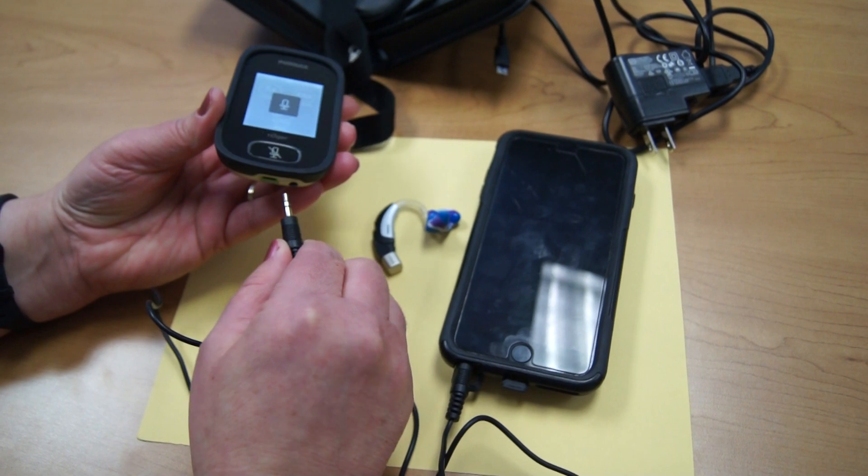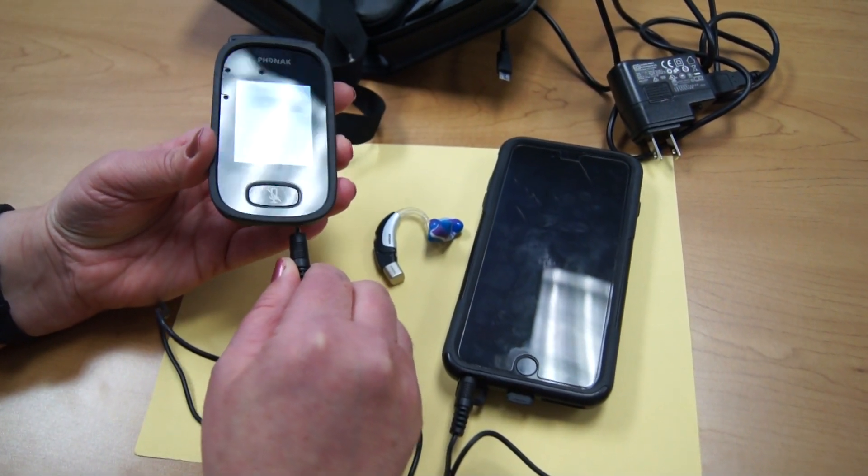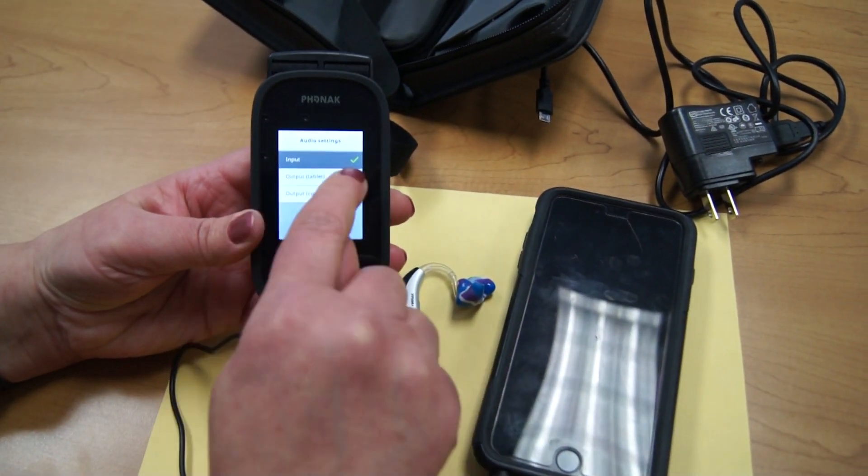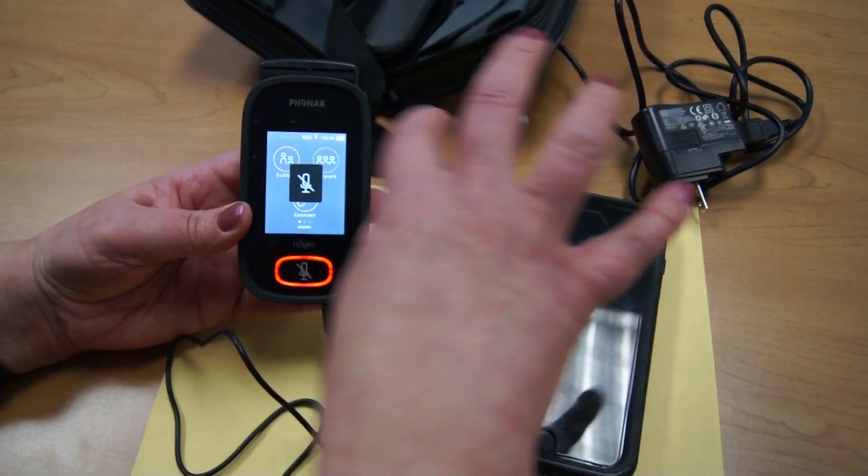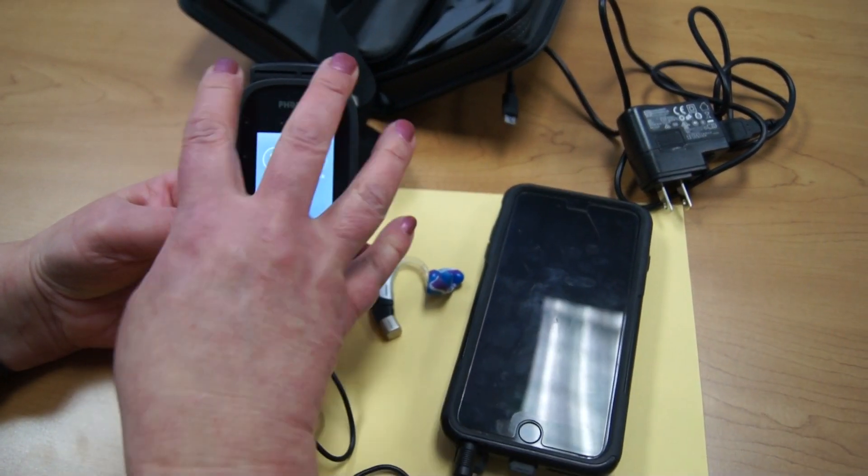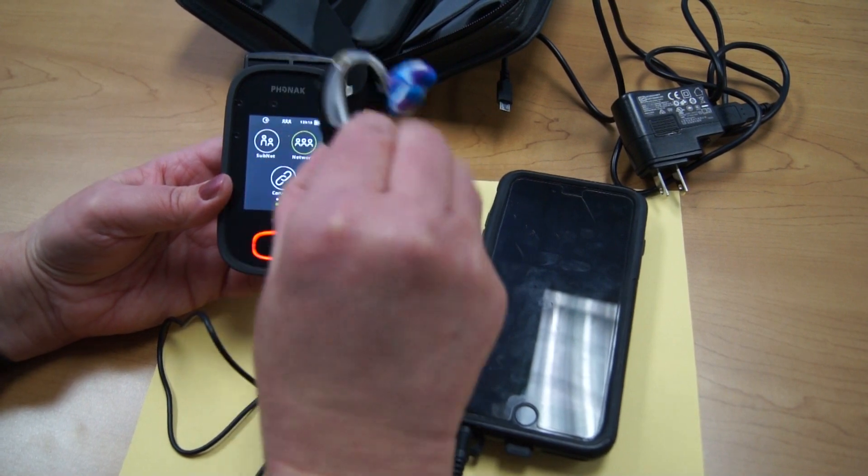When I plug that cord into the device, it says input. We want to keep it at input. We're taking whatever is coming from that device and inputting it into here to send to this receiver.